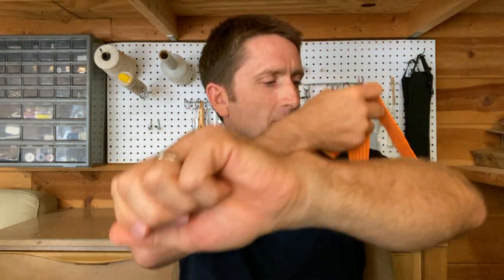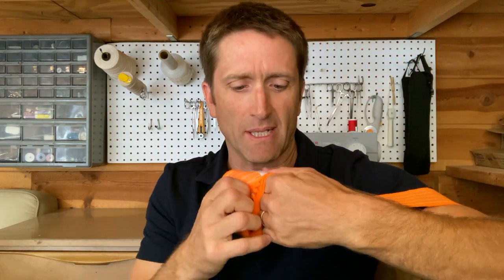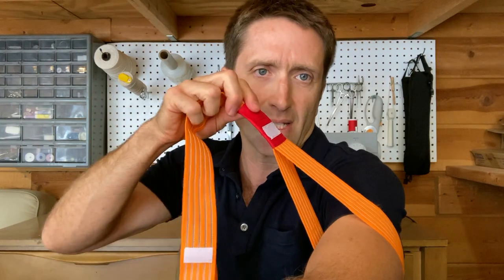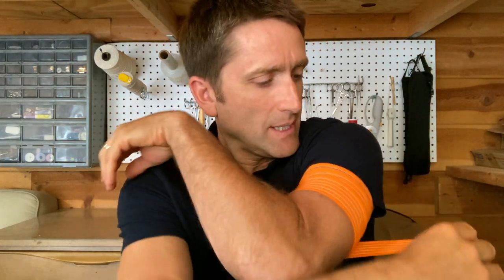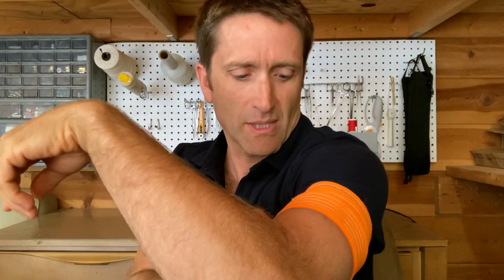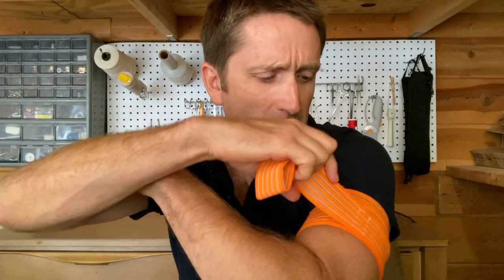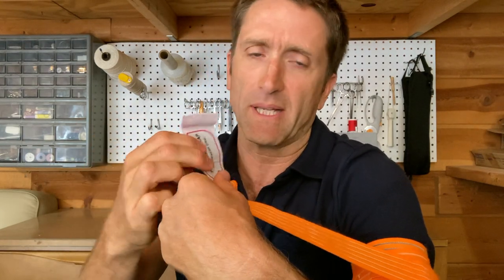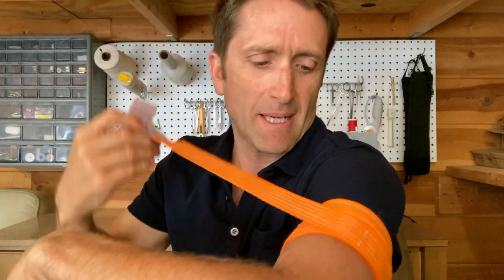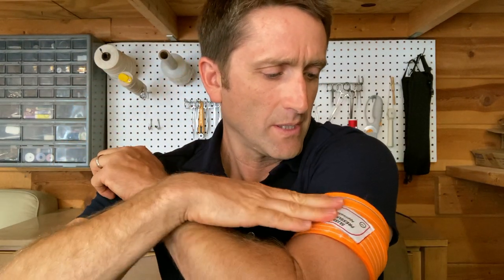How to apply it: there's a lasso at the end. I'll put it on my arm just because the arm is right here and easy to demonstrate, but it works on a forehead, legs, or other areas that are bleeding. The crux of it is this red sleeve — I pull and it cinches down. There's no skin pinch. I can make a wide wrap or a narrow one, a tight one or a loose one. While wrapping, there are Velcro tabs sewn along the way that stop it from unrolling quickly while applying, and they also help hold it in place. At the end there's a place to put the time. And there it is.